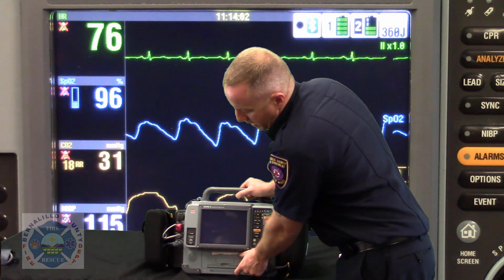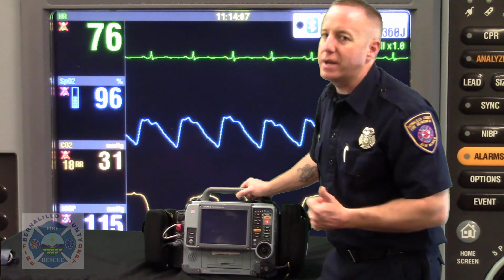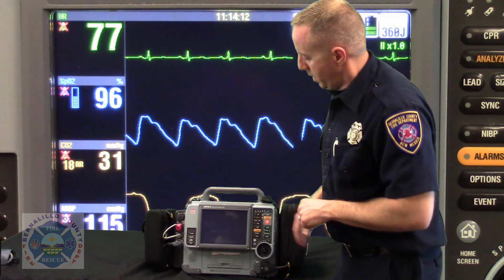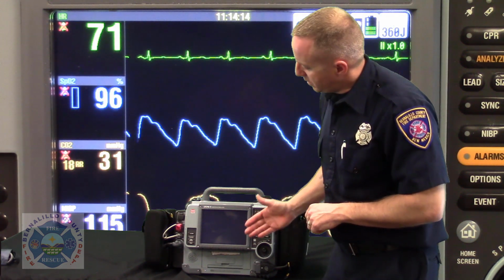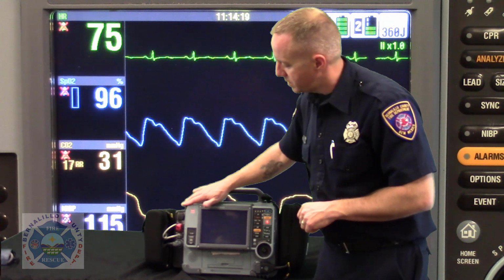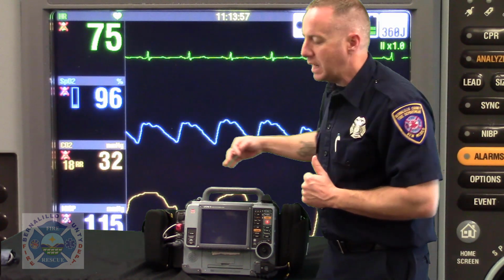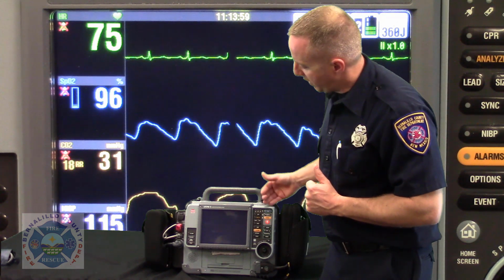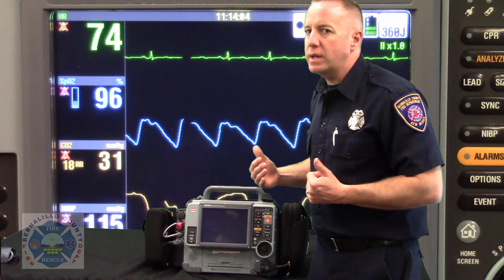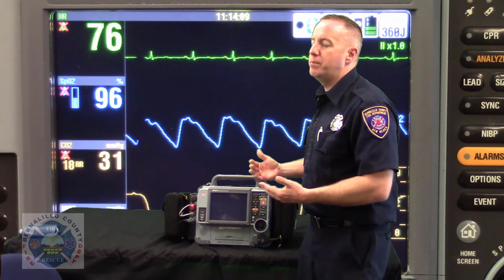So you'll see that 3 a.m. receipt printed out hanging off the front of the monitor, and you look at it and say, oh, look at that, it did a self-check at 3 a.m. Well, what does the self-check do for the Lifepack15? It has essentially checked everything beyond the screen here in the inner workings and wafer boards of the monitor, anything that you and I can't physically touch or assess. So it is checking all the connection points on wafer boards and defibrillator settings and everything else, and saying all the inner workings of my device are good, but we have not checked it beyond that.